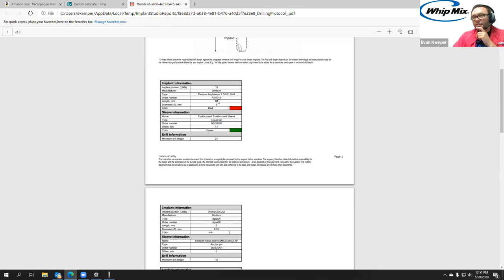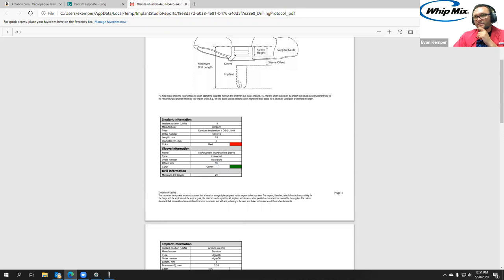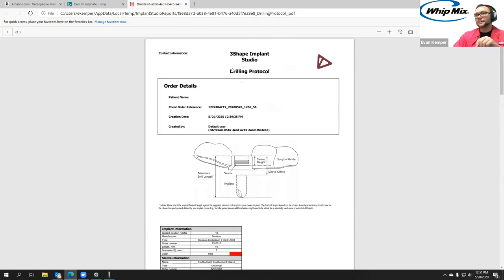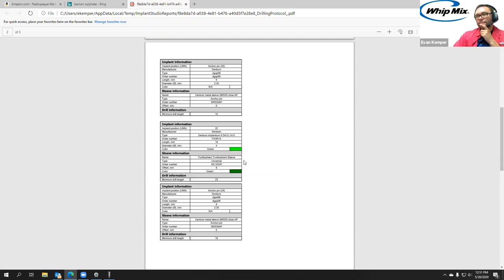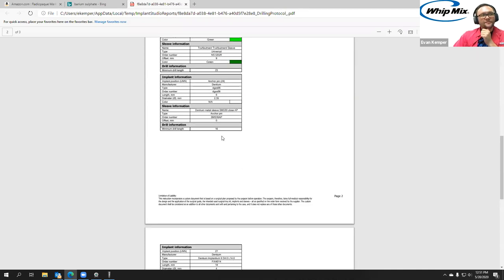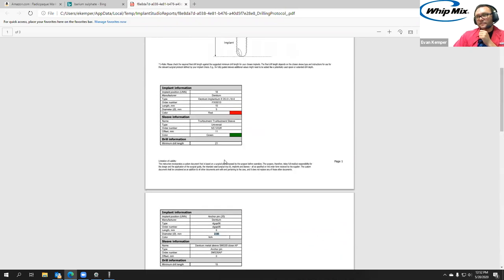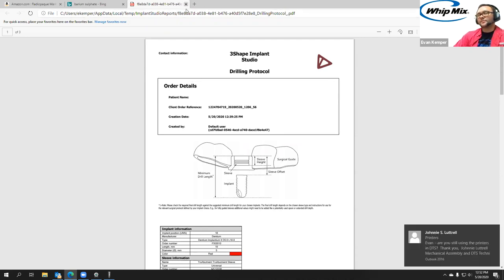That report gets sent to the surgeon or the doctor who's approving it. Once you get the approved copy back, you can come in and check 'approved planning,' which now locks the planning stage — you can go back and view the planning but can't move implants or add or remove pins. Once you approve the surgical guide, it locks that stage as well and gives you the drilling protocol. Depending on the implant and sleeve info, you get more or less information. This is using a universal sleeve — it tells you the color, the offset from the implant surface, and the minimum drill length. So if the implant is 10mm and the offset from the sleeve to the interface is 11mm, I need a 21mm long drill. Depending on the sleeve kit, there may be restrictors that stop it at 21mm.